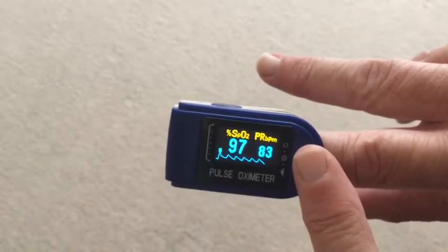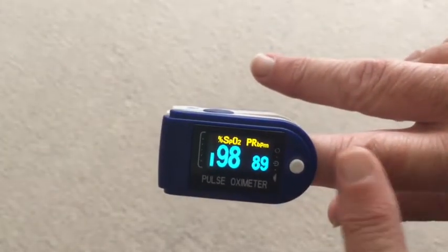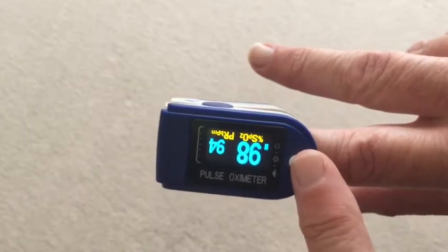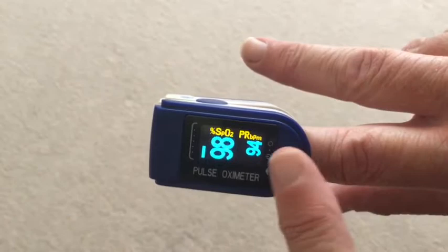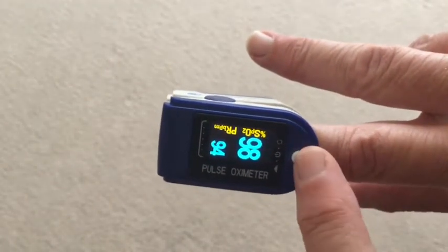This is the second screen. There are four more screens with numbers only plus that pulsating bar on the left. You can have this in the 12 o'clock, 3 o'clock, 6 o'clock, and 9 o'clock positions. One more tap after this takes it back to the start.